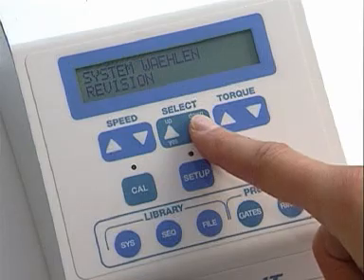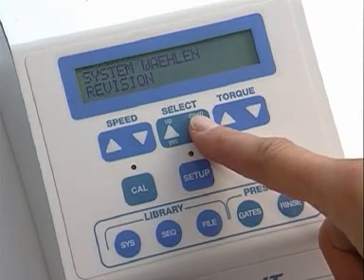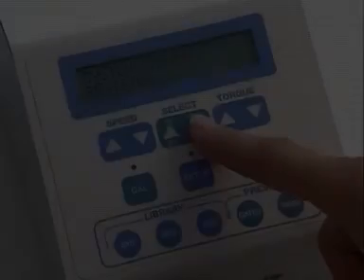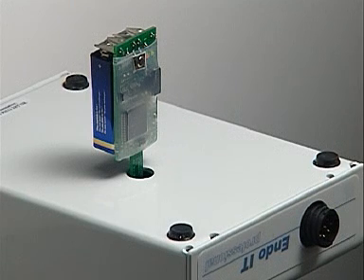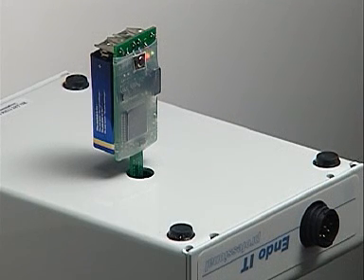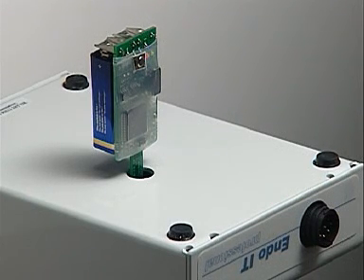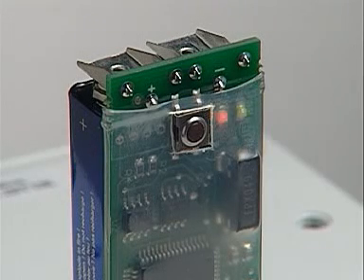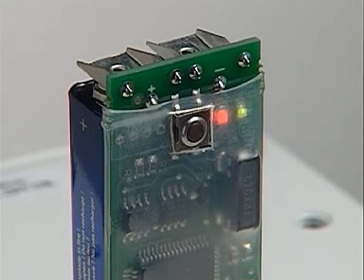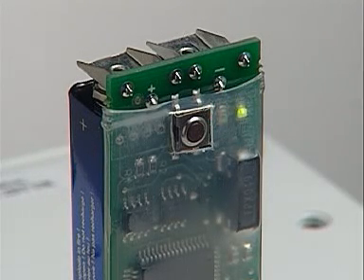The device also has two sequences specially designed for re-treatment. The Endo-IT Professional has an interface for program updates. Program updates are carried out quickly and simply with a reprogrammer — no computer download is required.